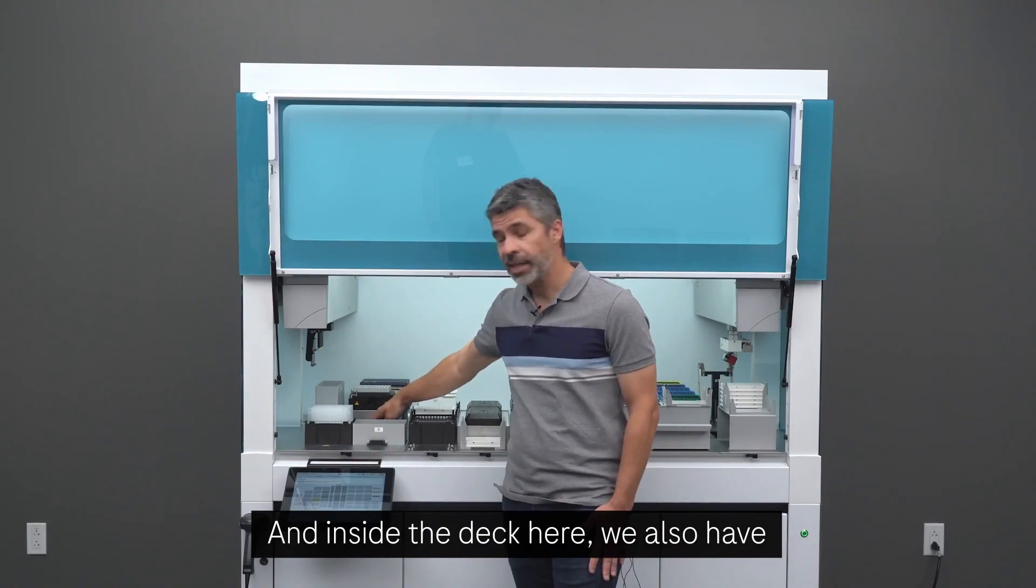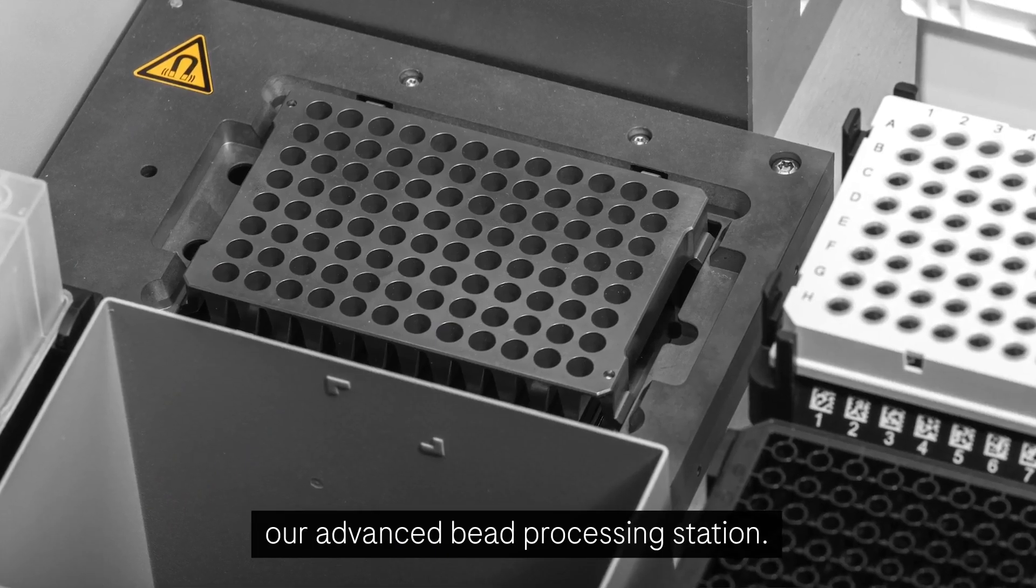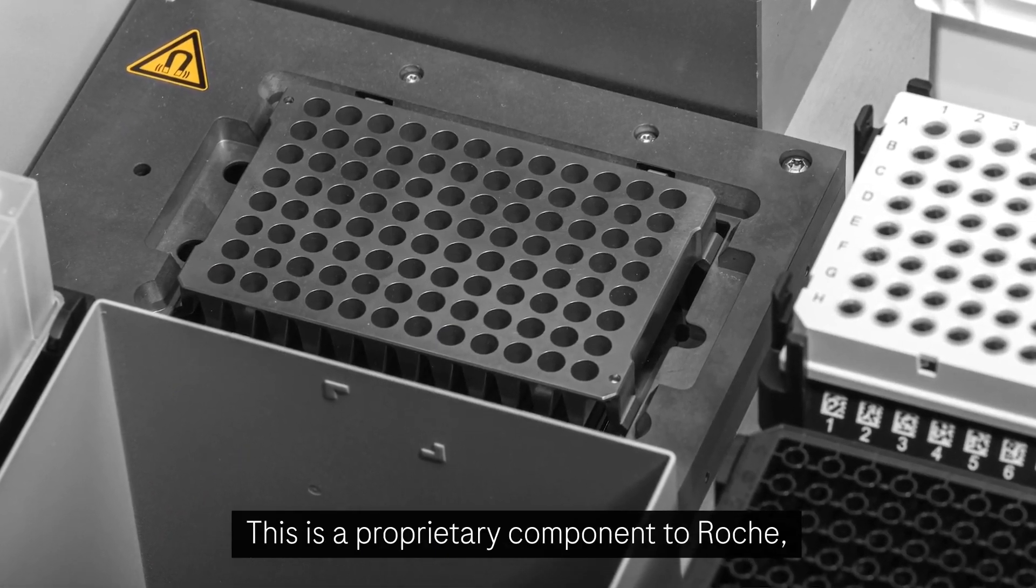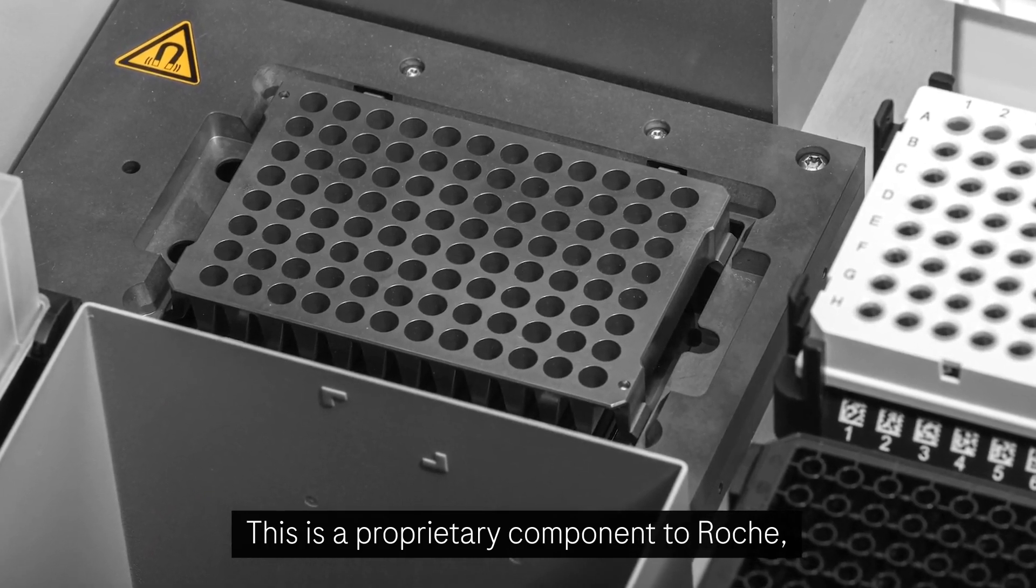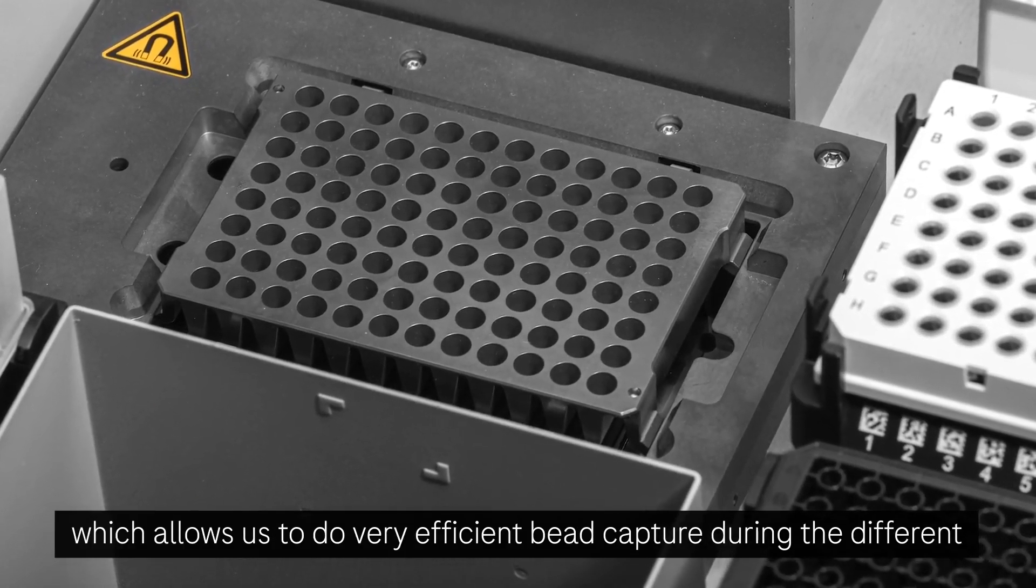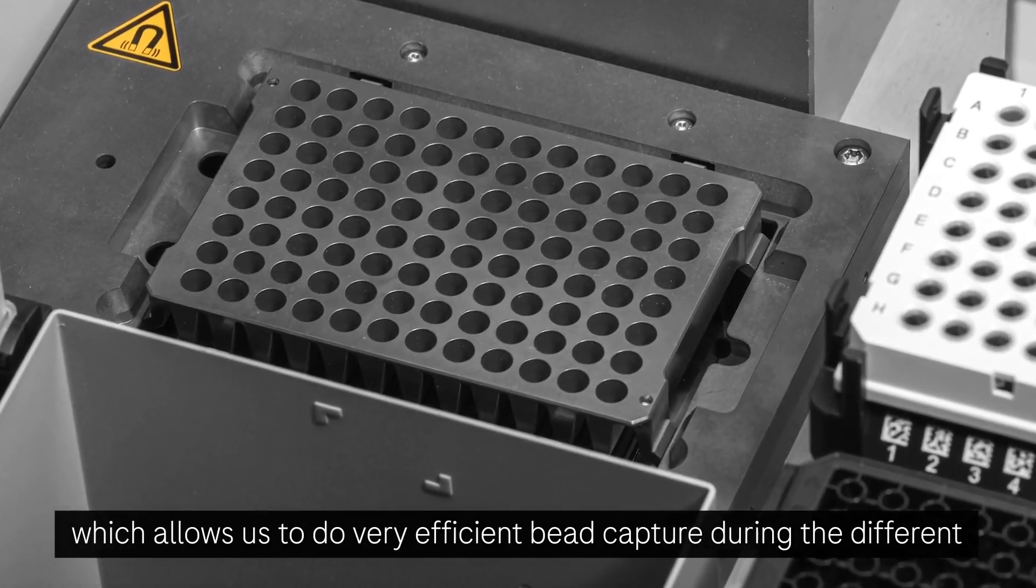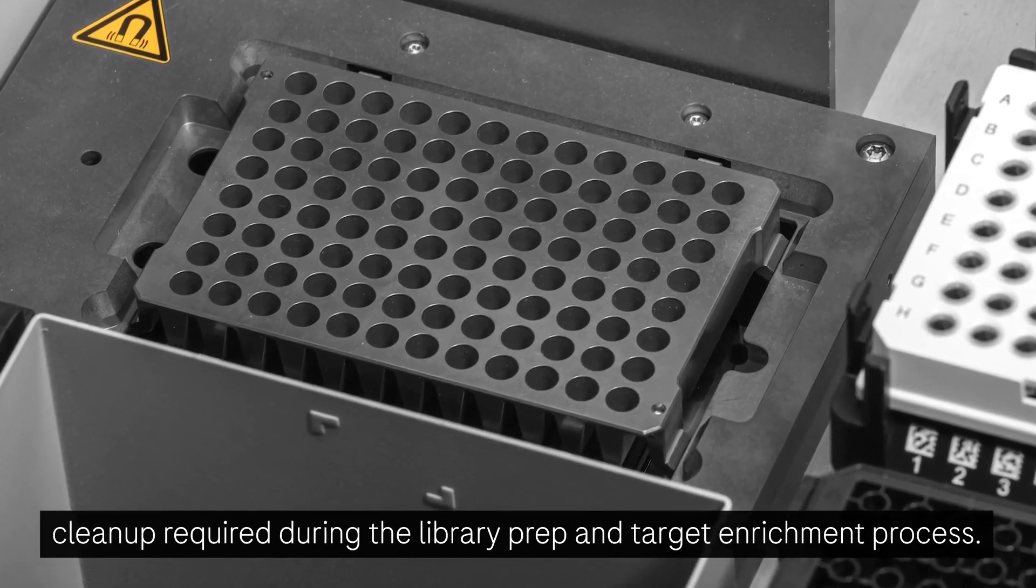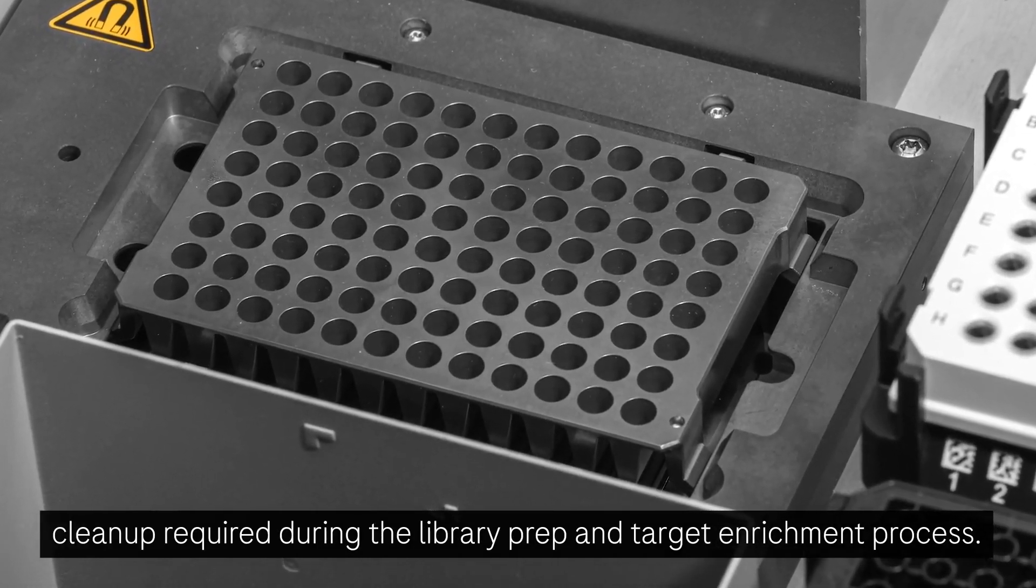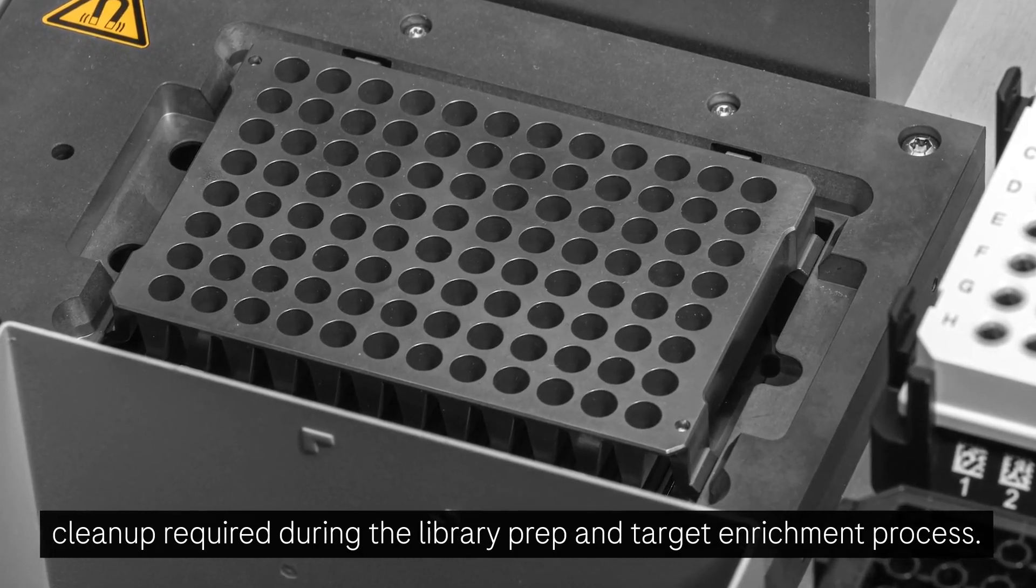And inside the deck here, we also have our advanced bead processing station. This is a proprietary component to Roche, which allows us to do very efficient bead capture during the different cleanup required during the library prep and target enrichment process.